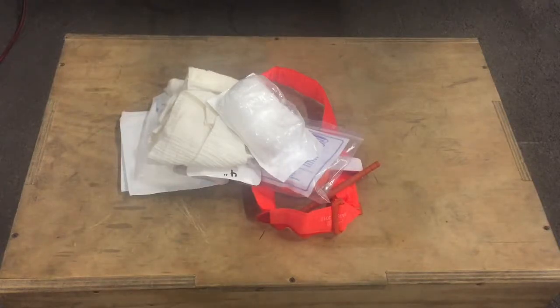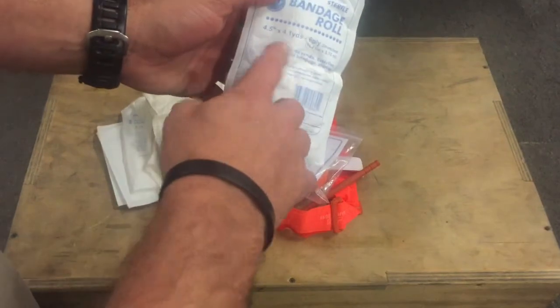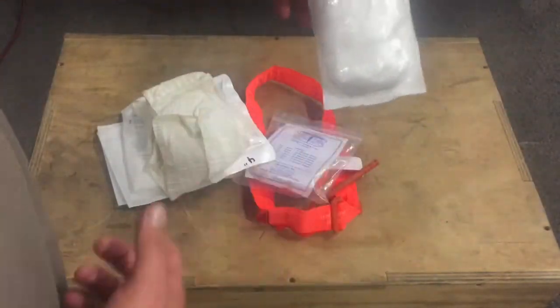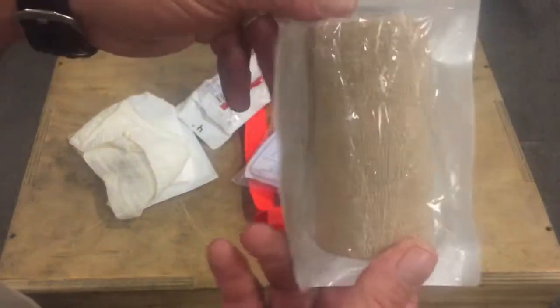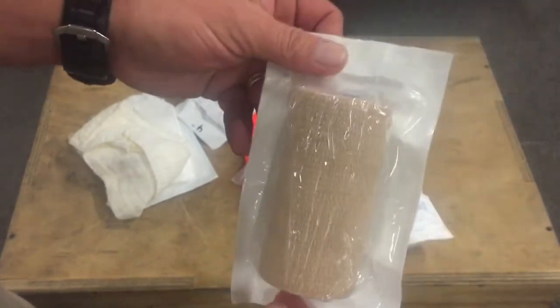A lot of people buy stuff because they've been talked into buying it, but they don't understand what it's for, how to use it, or when you would use it. So let's go through some samples. We're not going to get crazy because in the medical field there's a ton of stuff. This is a bandage roll — basically four and a half by 4.1 yards. We use this as a wrap around your head, arm, whatever the case is. Something that may work a little bit better is this one — it has an adhesive where it sticks to itself. You'll see these at tractor supply places for wrapping horse legs. It's basically a cohesive bandage.